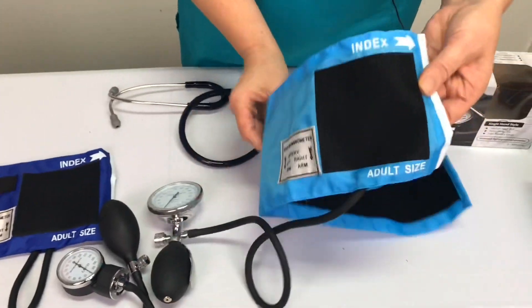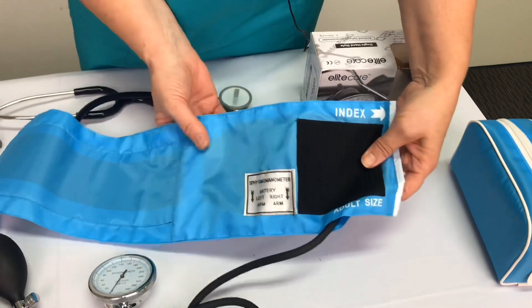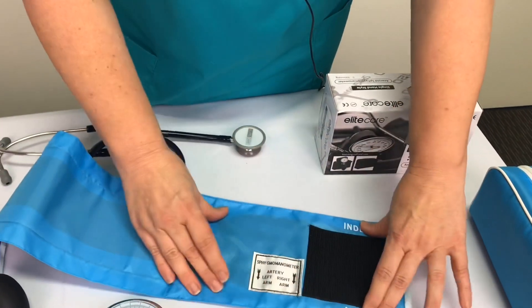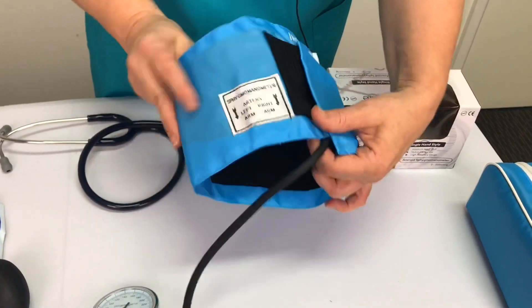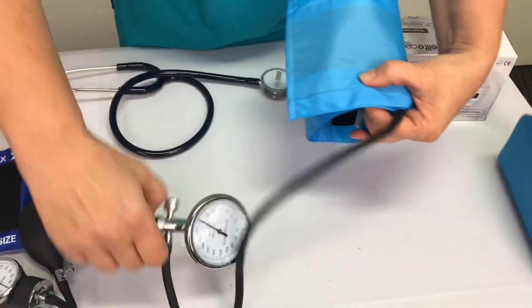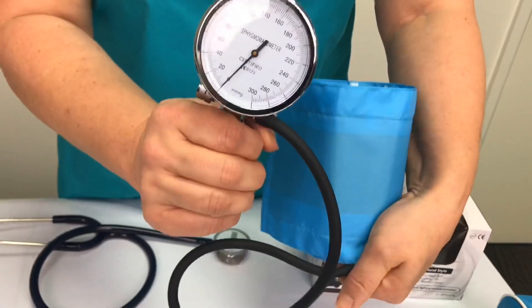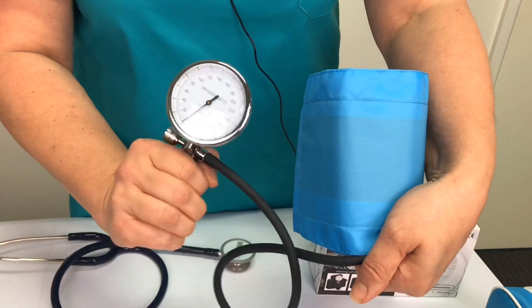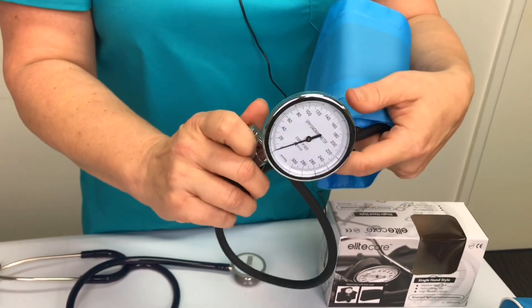The single-handed sphyg has the same anatomy — there's a cuff with a bladder that will inflate once placed in the correct position wrapped around the person's arm. To tighten the valve, remember righty tighty lefty loosey. Once it's on an arm with some pressure resistance and you start to pump, the gauge will go up. But again, because we're not on an arm right now, it won't show a change in measurement — so we need to pop that on an arm, which I'll demonstrate shortly.